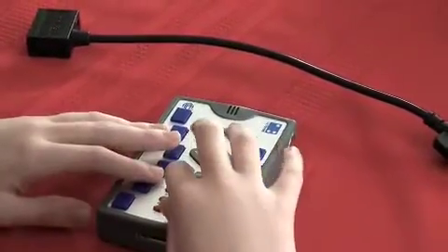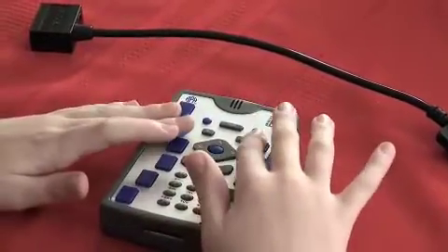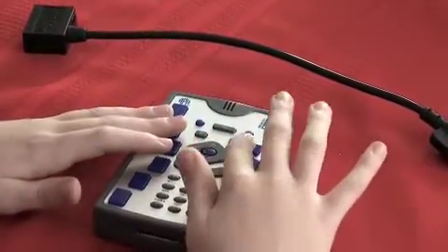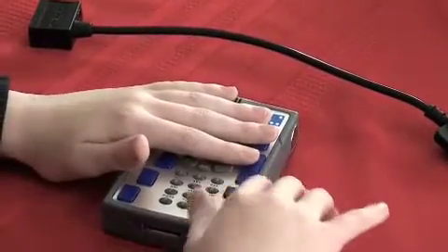Select. Two. Seven. Dot one. Launch program. Space. Control. Shift. Such as that. And it'll tell you every key that you push.